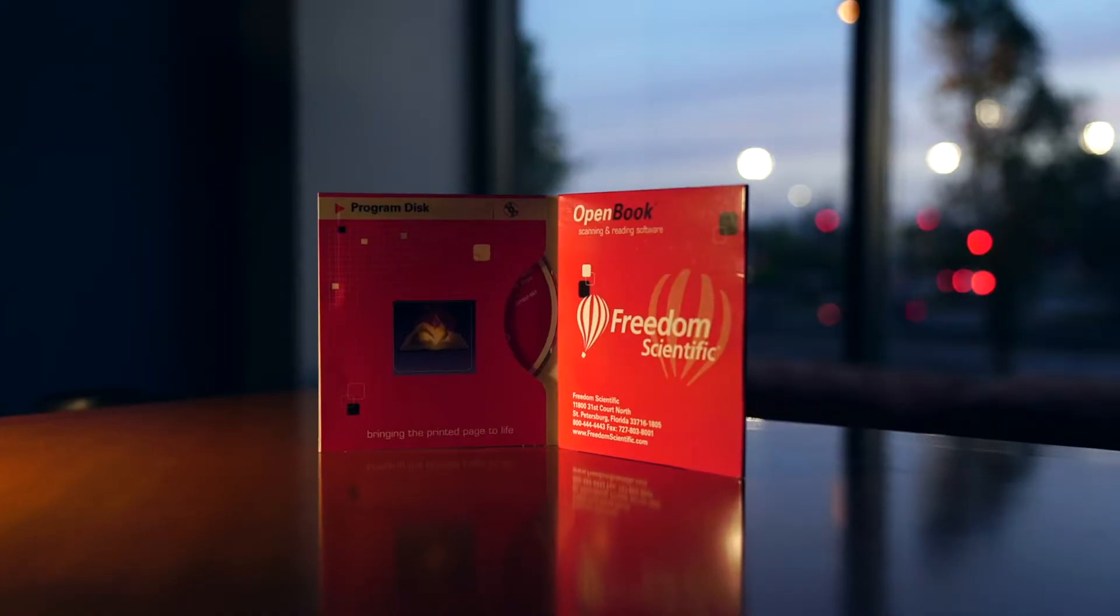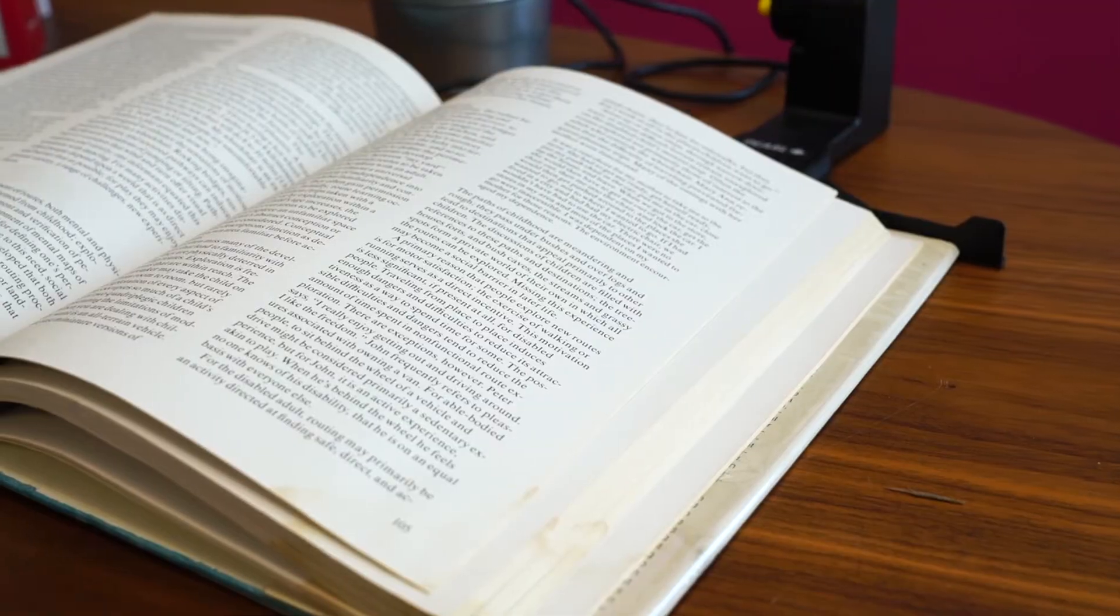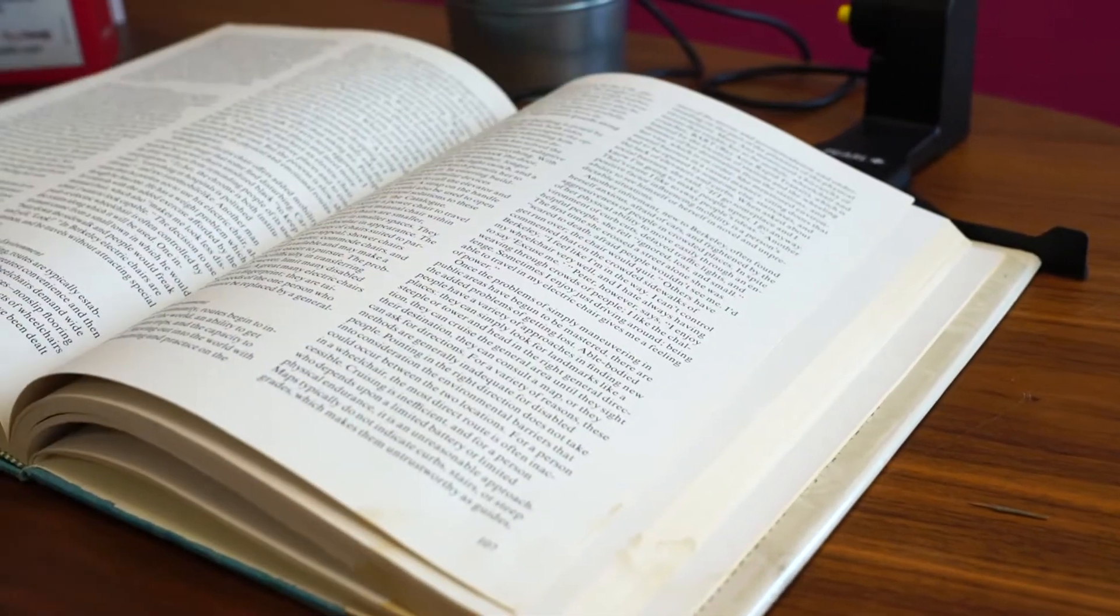For books and magazines, Open Book can take consecutive pictures of each individual page, allowing you to scan an entire book in record time.